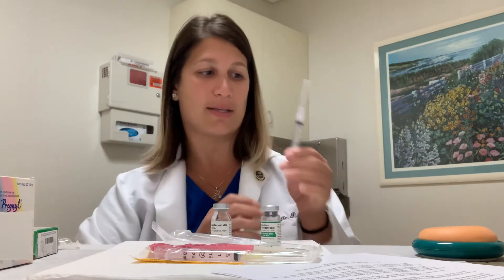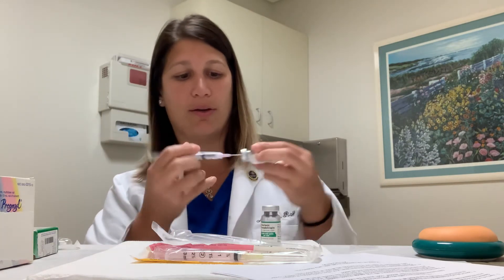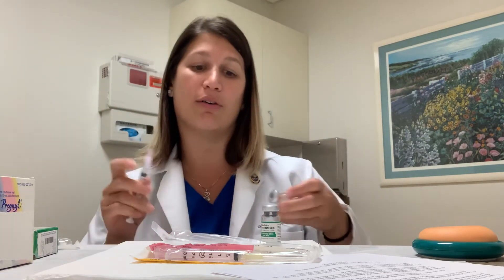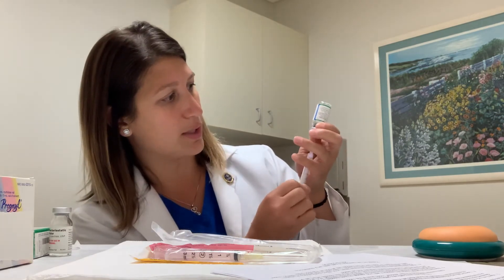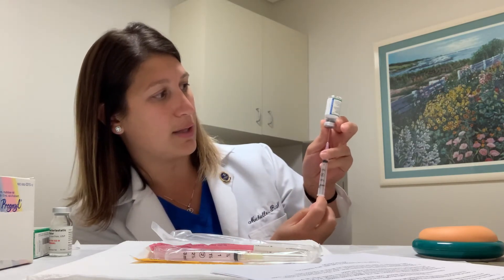If you're on a full dose of HCG, take the syringe and draw up one cc of air. Go into the fluid vial, inject the air in, and draw out a little bit past one cc. If there are any air bubbles, give it a little flick, then push back up to one cc. Take that needle into the powder vial and inject it all in. Just like the Menopur, swirl it a little bit — this one takes a bit longer to break down and you might see white chunks, so continue swirling. When drawing the medicine out, the vial has a rubber stopper with a small window, so position your needle tip so you can see it in that window, push out any air in the syringe, then draw everything out that you can.